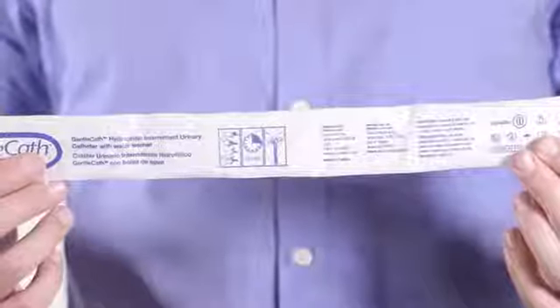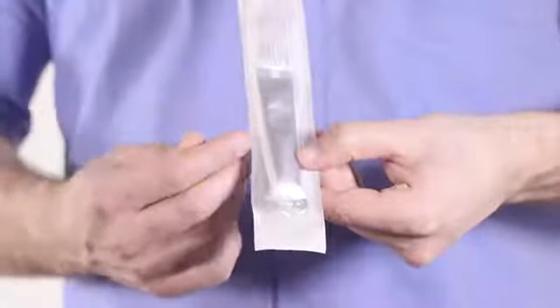The important thing to remember before you open the catheter package is that you will need to activate the hydrophilic coating.